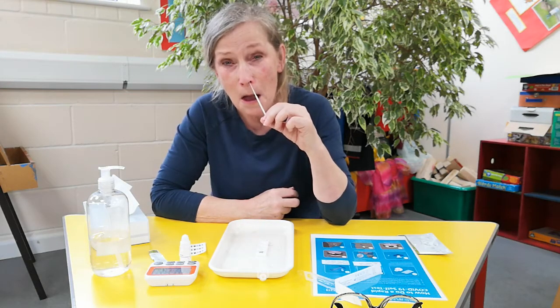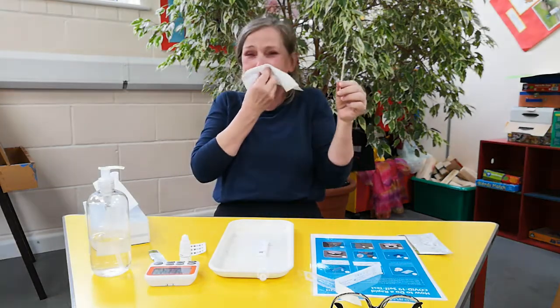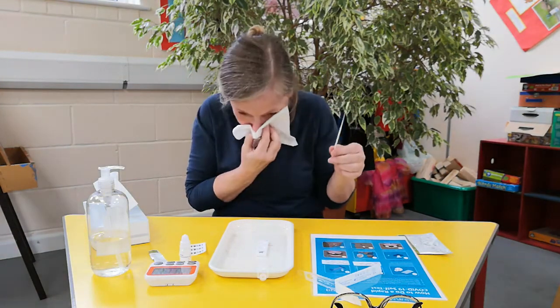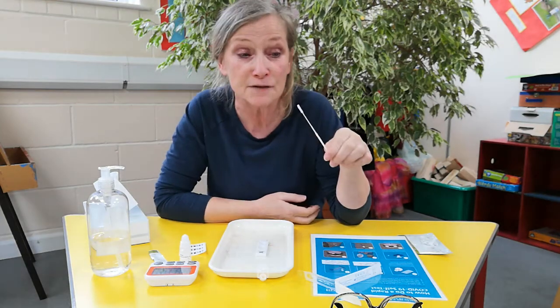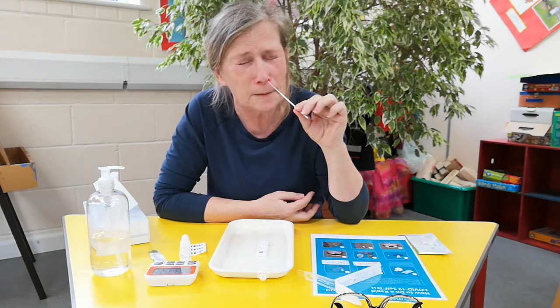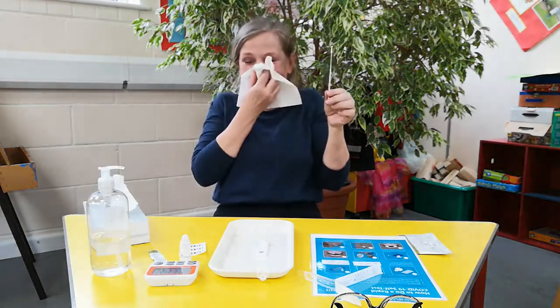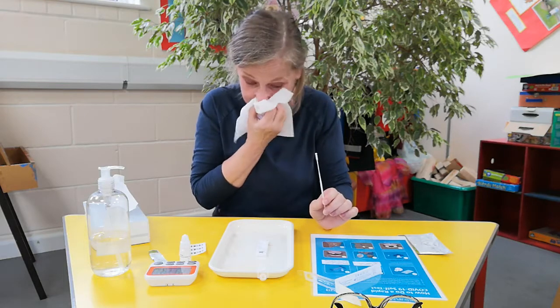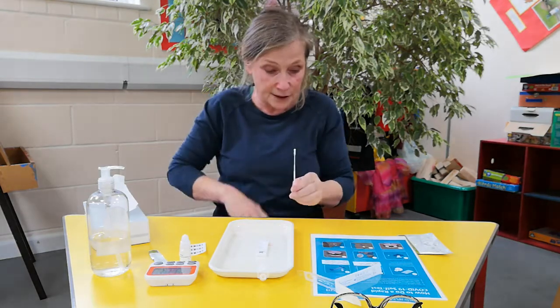Go up for a good 10 seconds each side, sweeping and rolling around. A good 10 seconds in one nostril, and then you've got to go up the other nostril. Try not to hit your cheek on the route — just go all the way up. Look how far up I'm going. I'm going to have to finish that off because I didn't do 10 seconds. It makes you cry as well. As you can see, I'm having a good cry. So a good 10 seconds up each nostril.